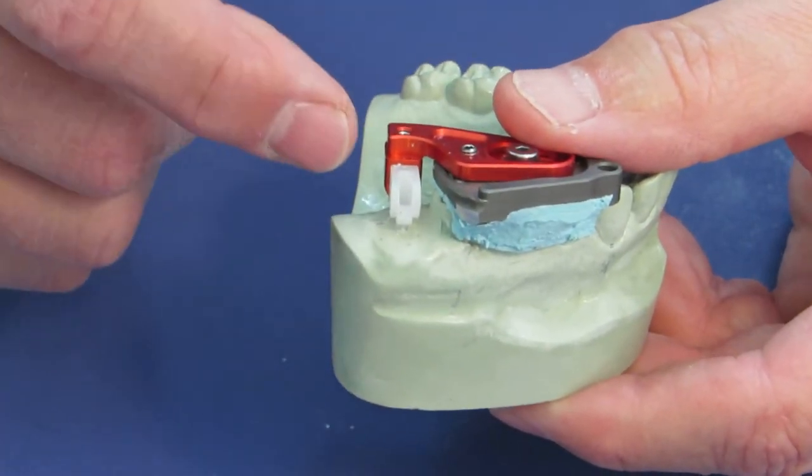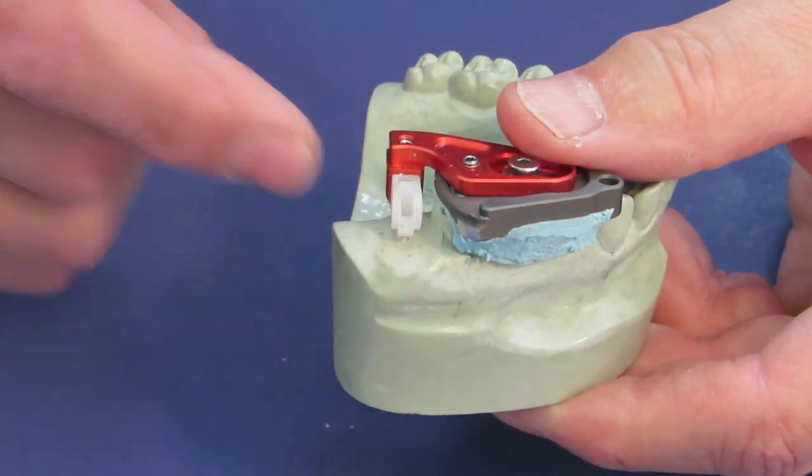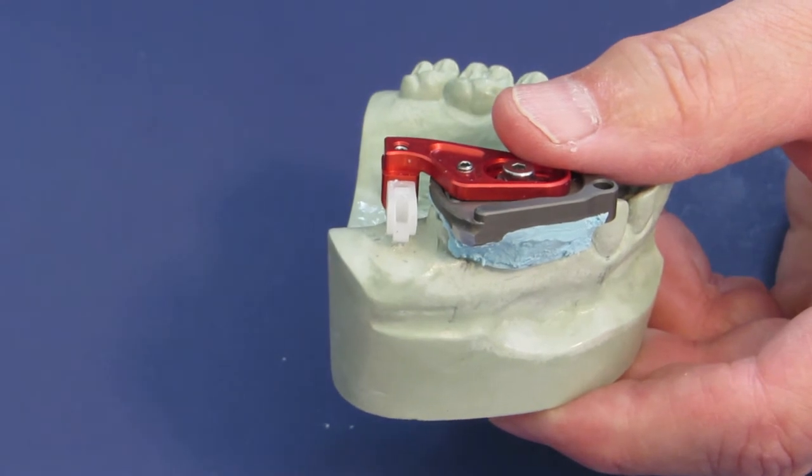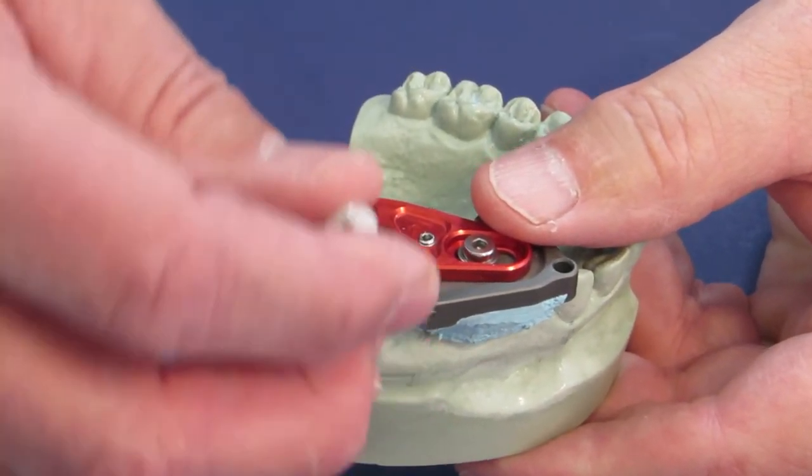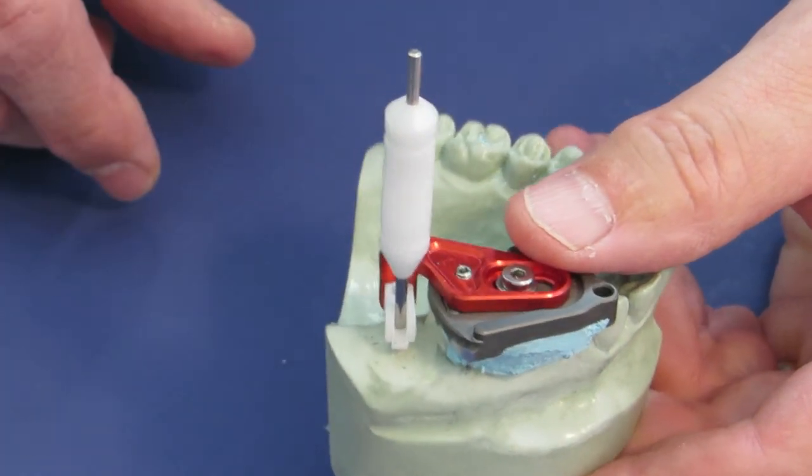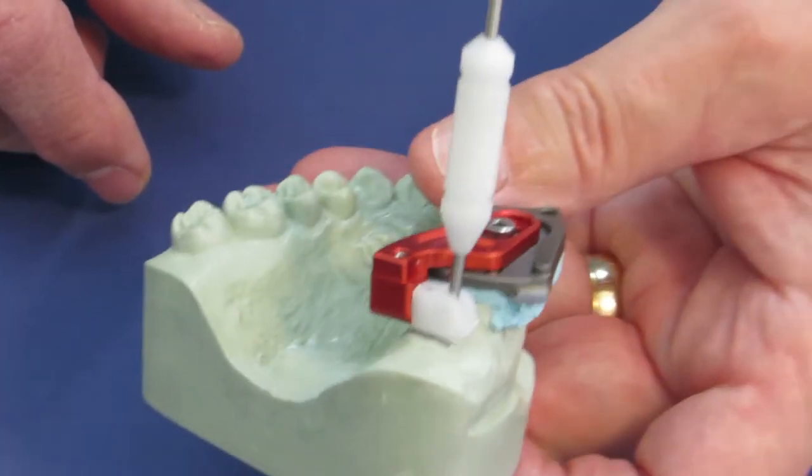As you can see I have a side loading window here. So with my drill I can just come in from the buccal, slide it right in and up, and I am ready to make my osteotomy.